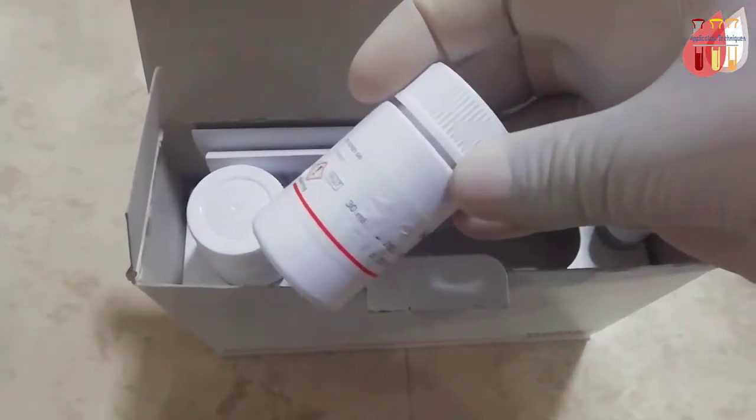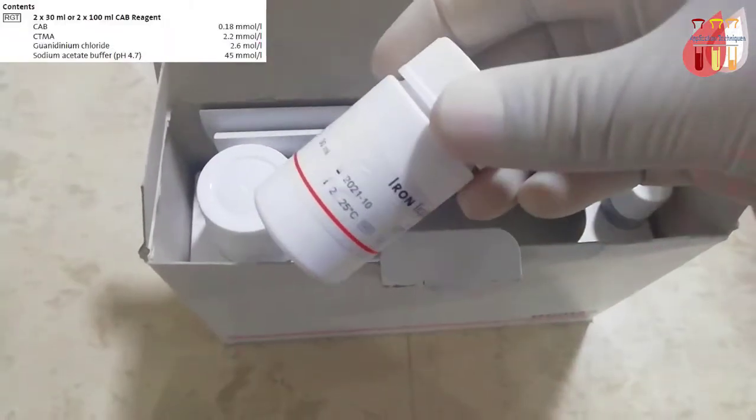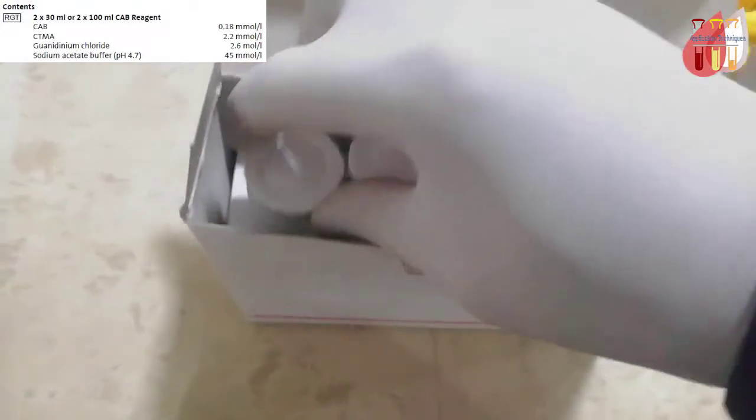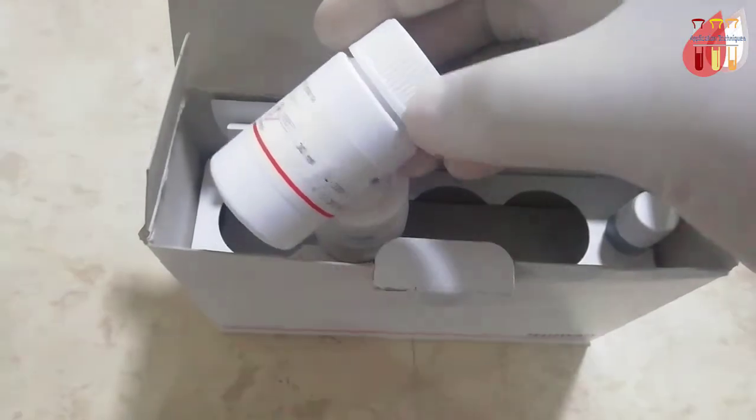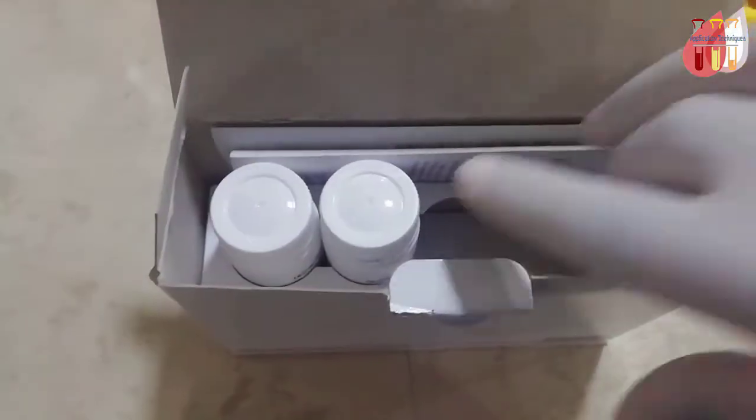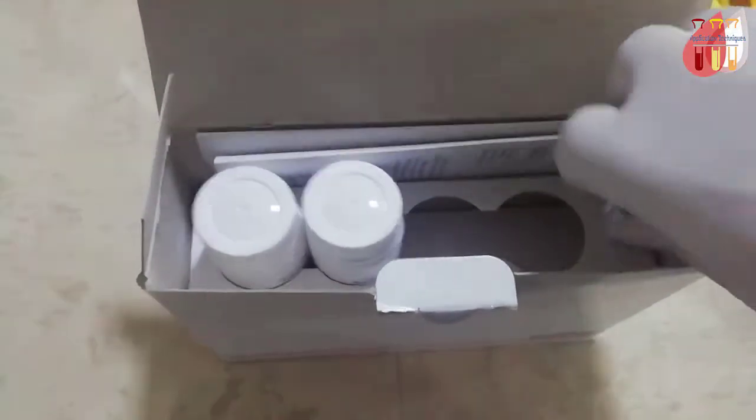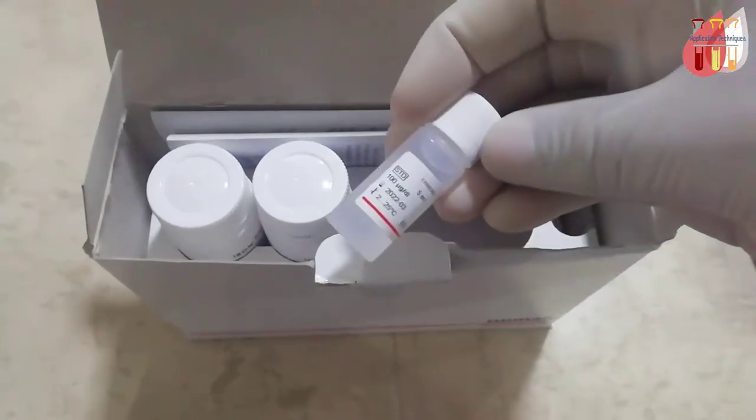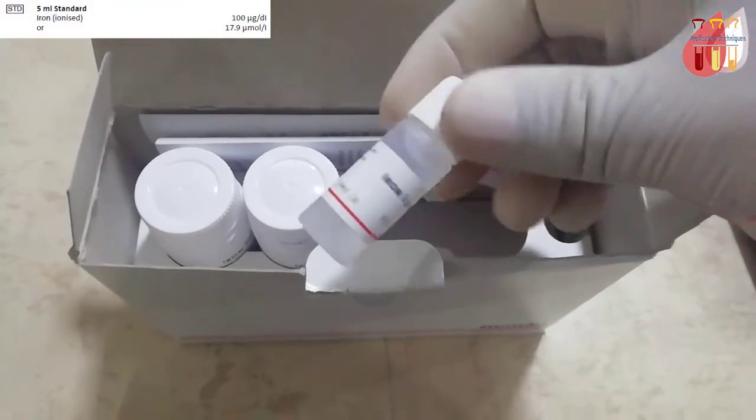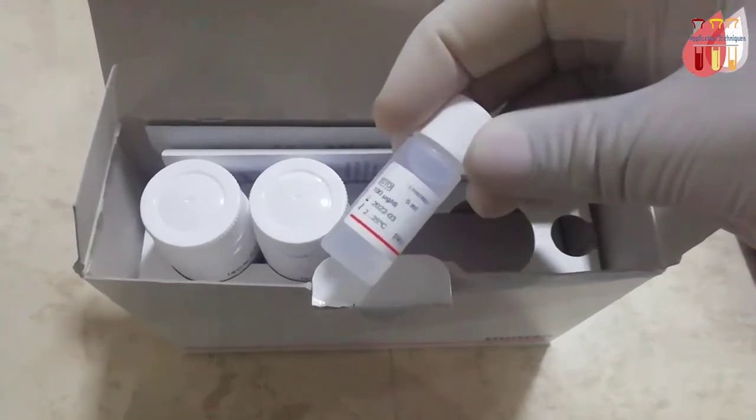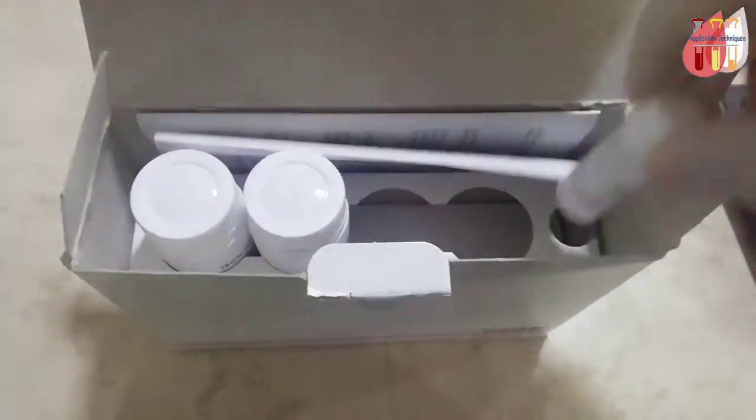It contains one 30ml vial, another 30ml vial, and 5ml standard at 100 micrograms per deciliter concentration, which is 17.9 micromoles per liter.